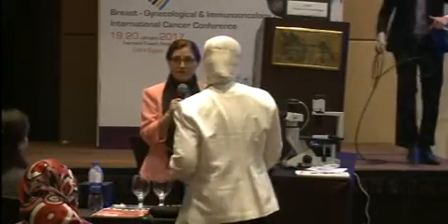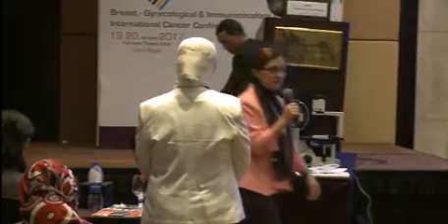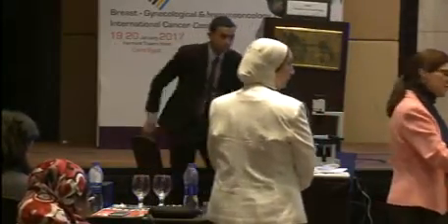Now we are going to do this slide review session, and this is going to be a very informal session. Dr. Manal asked me, we're going to have the microscope. If anybody has a slide they would like to bring, we can discuss it together. So we have one case. Would you like to read the case, sister?